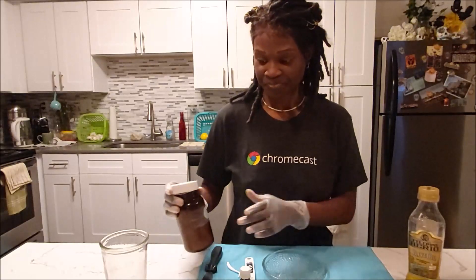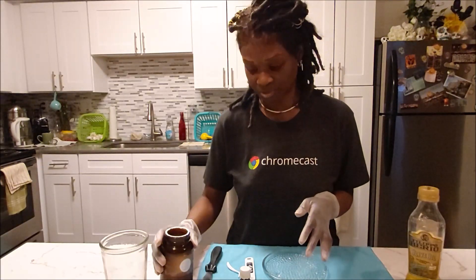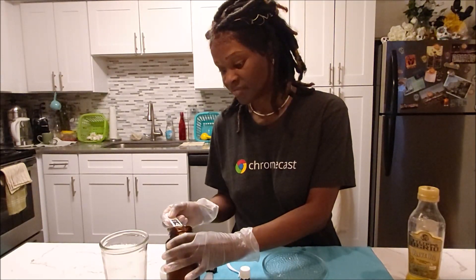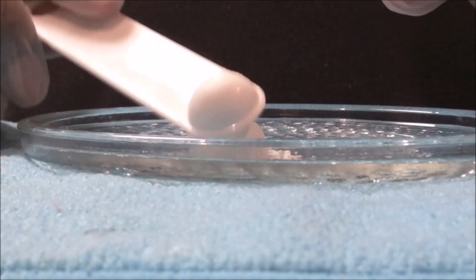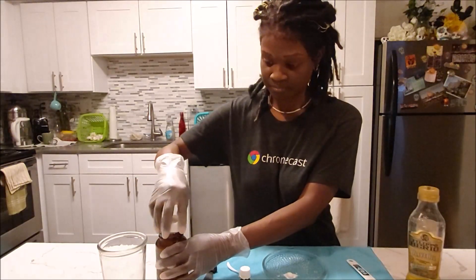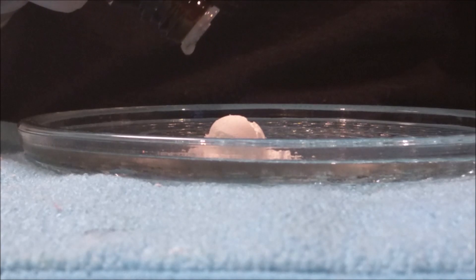But what we're going to be using here is zinc oxide powder. This is going to be one part zinc oxide to two parts eugenol oil. So we're going to take a quarter of a teaspoon. I only use this spoon with this eugenol oil. We're going to put that there and set it to the side. Close that up. And then for the eugenol oil, this is going to be two drops — one and two.